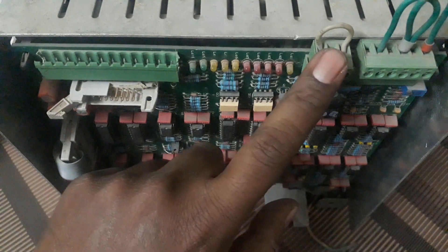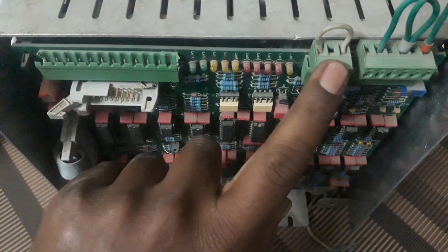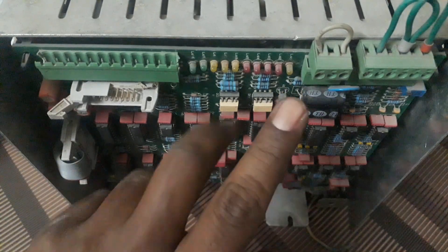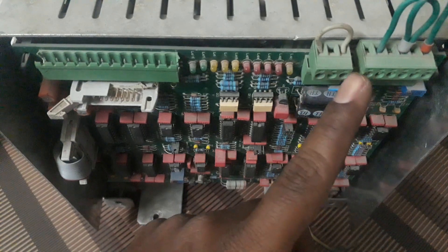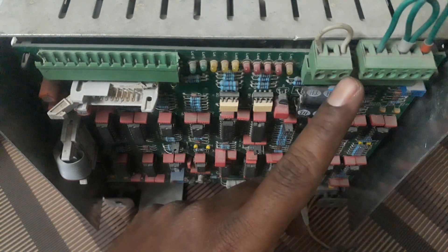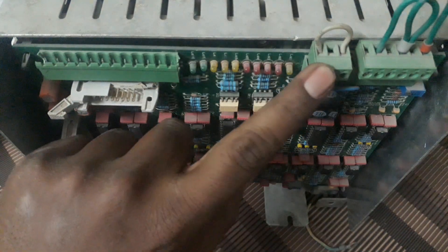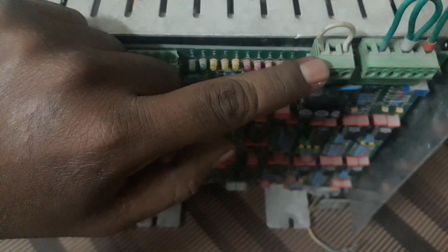The CP3 connector is used for measuring MA through an MA meter. Connect one wire of the MA meter to pin number 1 and the other wire to pin number 3. Pin number 2 is left blank. When you press the foot switch, you can measure how much MA is flowing.